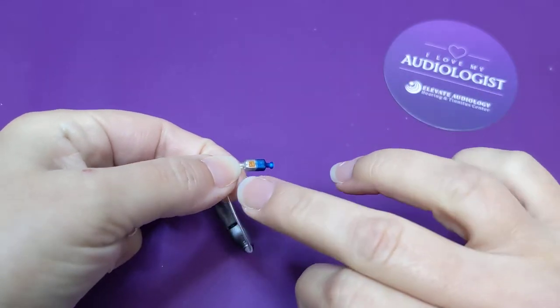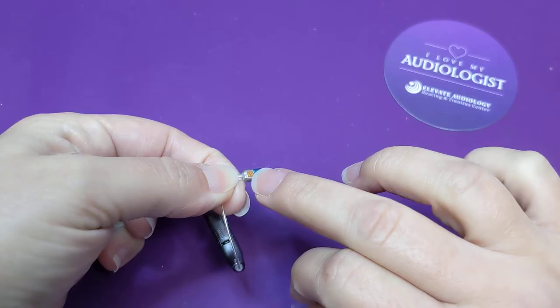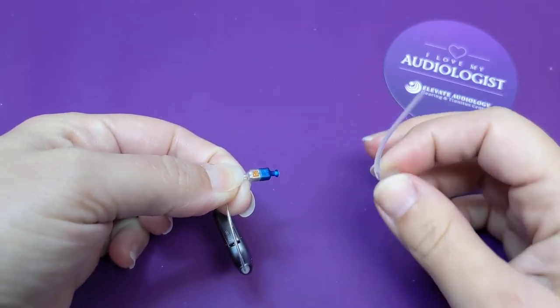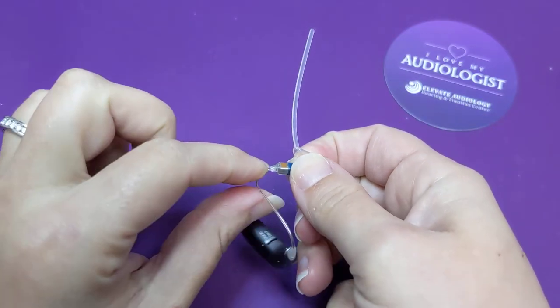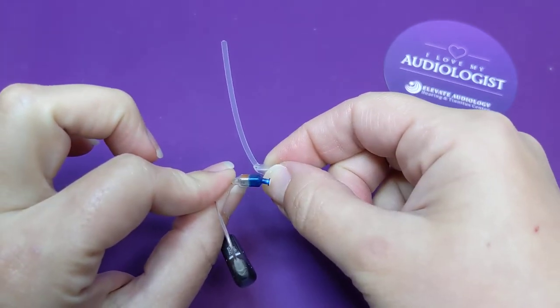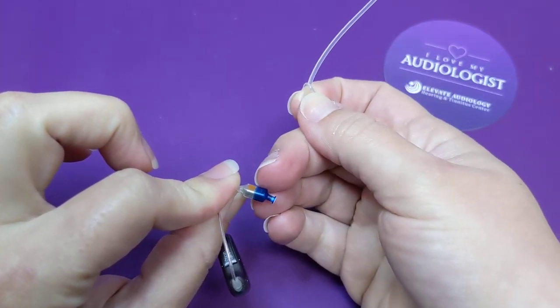The other trick is where the number is. So it would be a 60 or an 85 or technically 100, but you won't typically see those without your molds. You want the anchor piece to be on the side of, on top of the number.